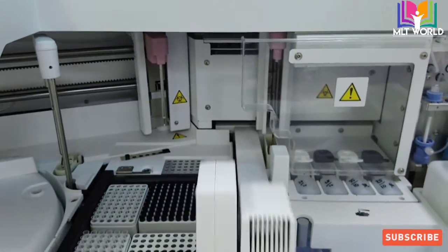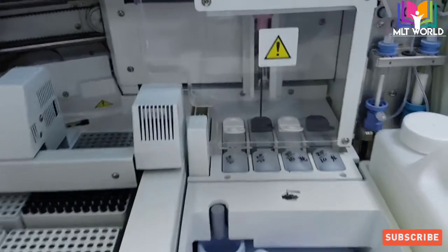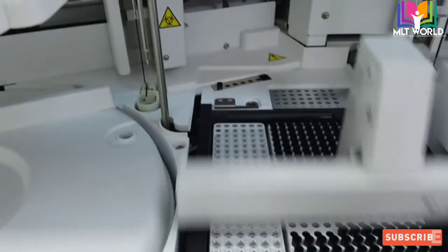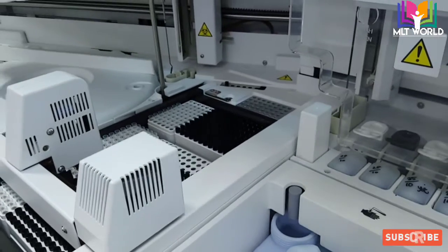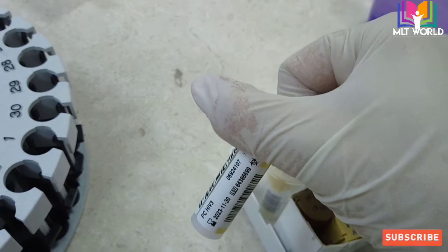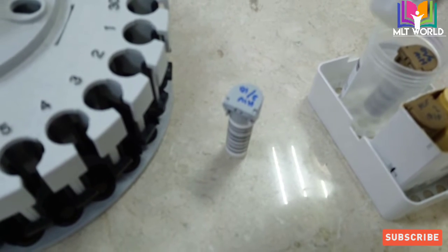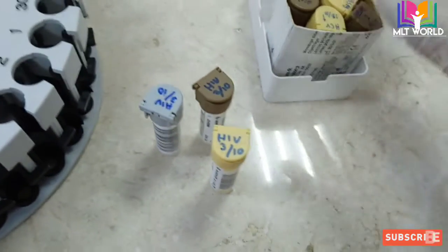You can see on the outside: one side is moving and checking for cups and trays, the other side is checking pro cell and clean cell levels. The number of bottles needed depends on your test volume — if you have fewer tests, one bottle each is fine, but for more tests it is better to keep two bottles of each. The reagent scan takes only one to two minutes. During that time, prepare controls and samples — if they have been in the fridge, keep them at room temperature for at least 15 minutes to settle.